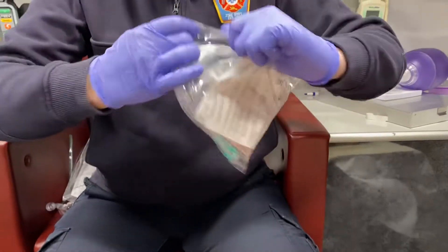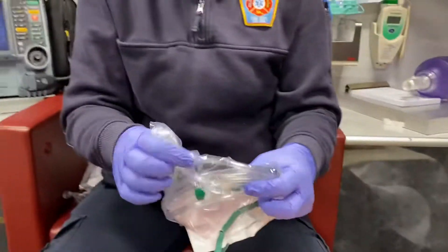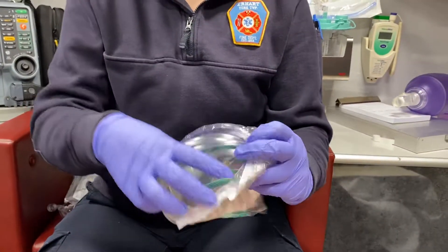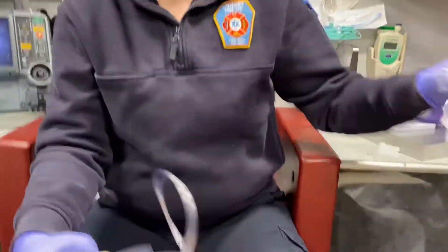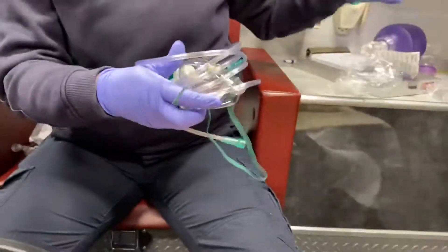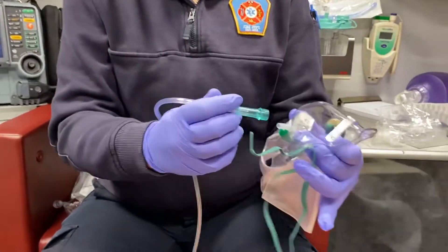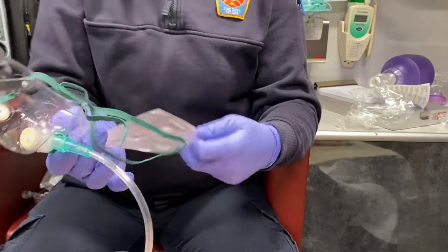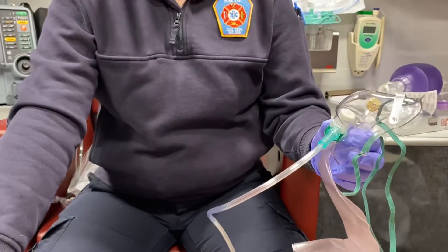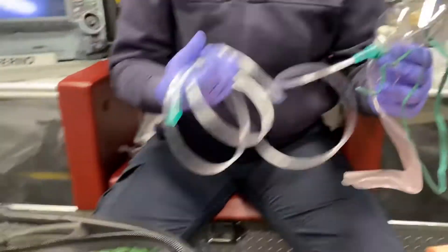This is for patients who may require a little bit more oxygen. This will deliver 90 to 100% oxygen flow. We do want to set our oxygen to 10 to 15 liters for this — I usually just go ahead and put it up to 15 liters.